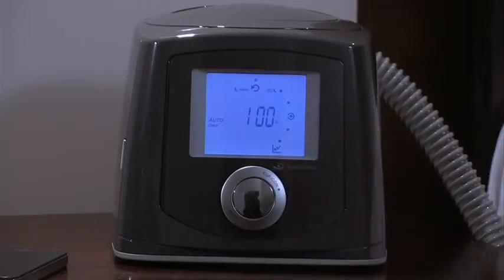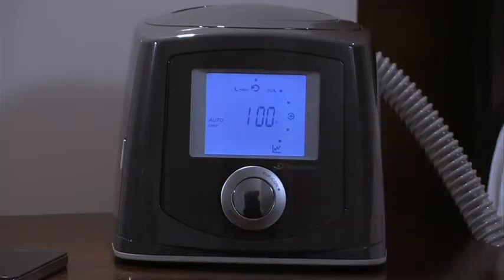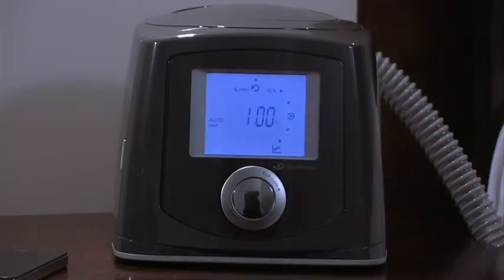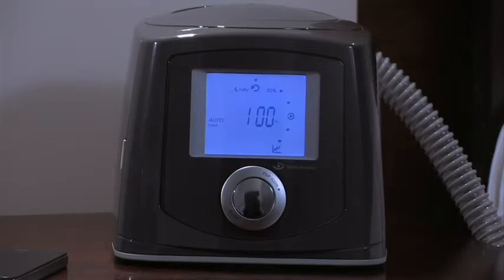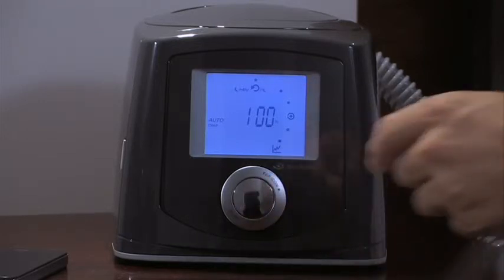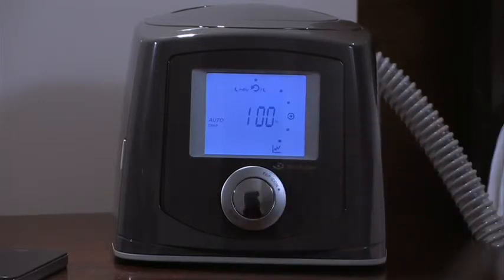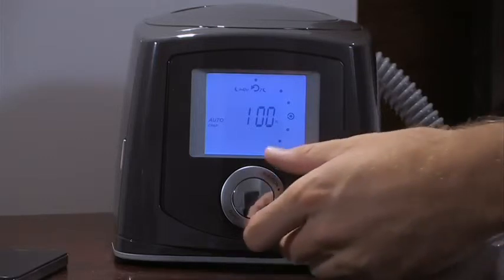This figure shows the percentage of nights greater than 4 hours for the last 30 nights. Press the smart dial to access the average for the last 7 nights.